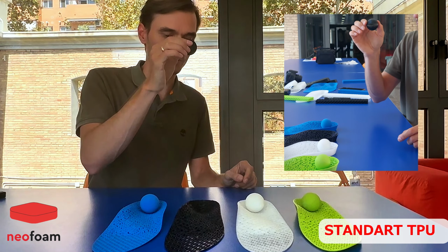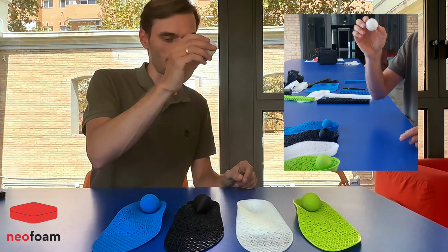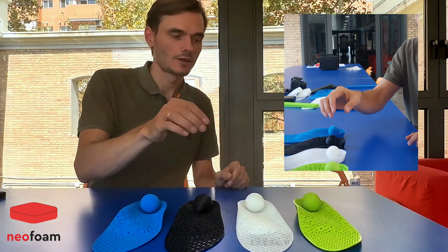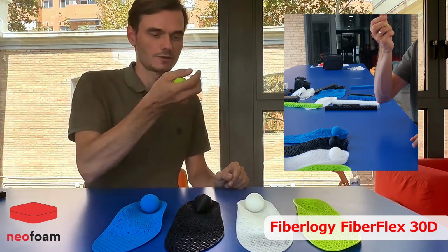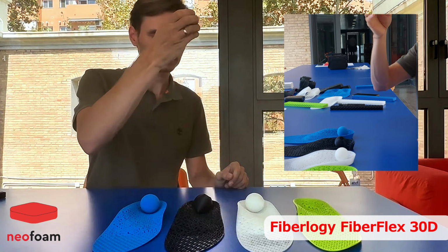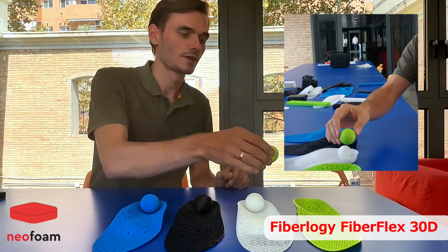So number 1. Okay. Let's see how the BASF will work. You see it's a bit more bouncy. Let's get here. The energy return of this material is the most. So it really jumps. More than 70% of the energy is returned.